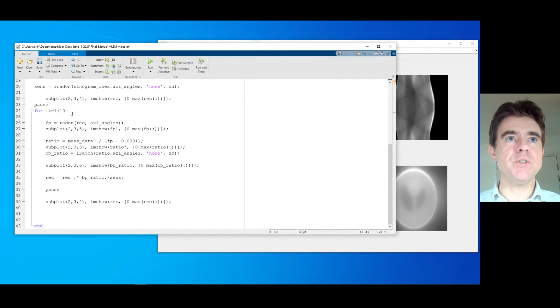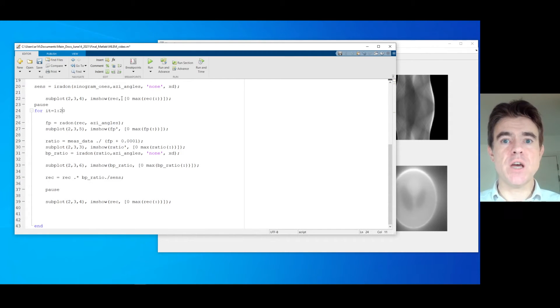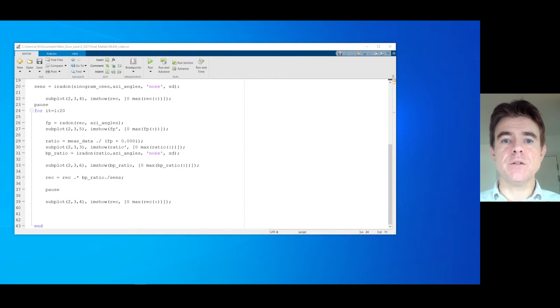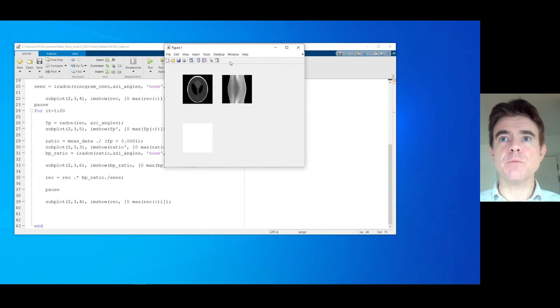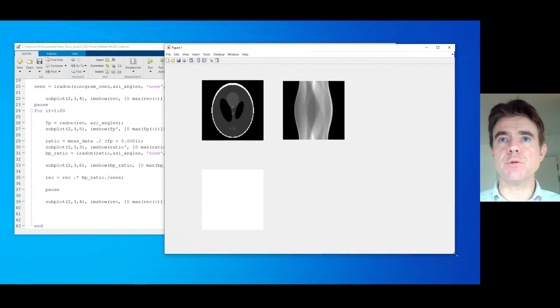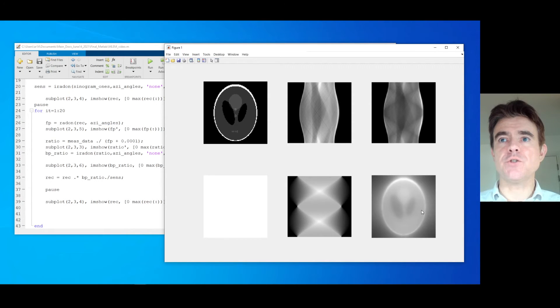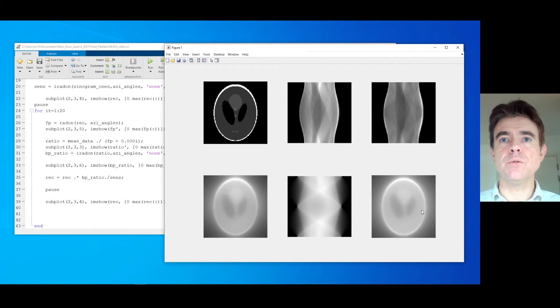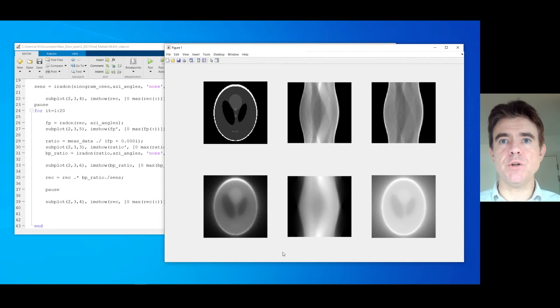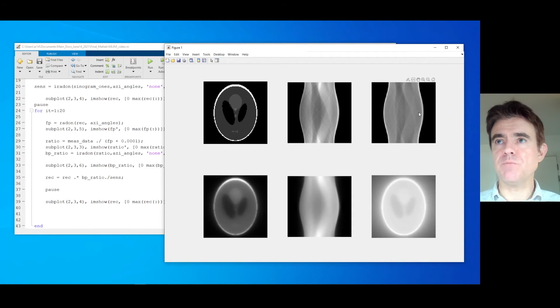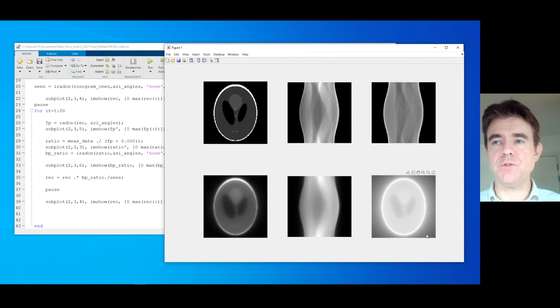So we can do maybe 20 iterations of that. Then I think we'll be ready and complete with our iterative reconstruction algorithm. There's iteration one, two — and then we just keep going. Every time I press a key, we're forward projecting this object, comparing to the measured sinogram, computing the ratio, back projecting and multiplying — with the division by the sensitivity image to normalize for varying contributions.